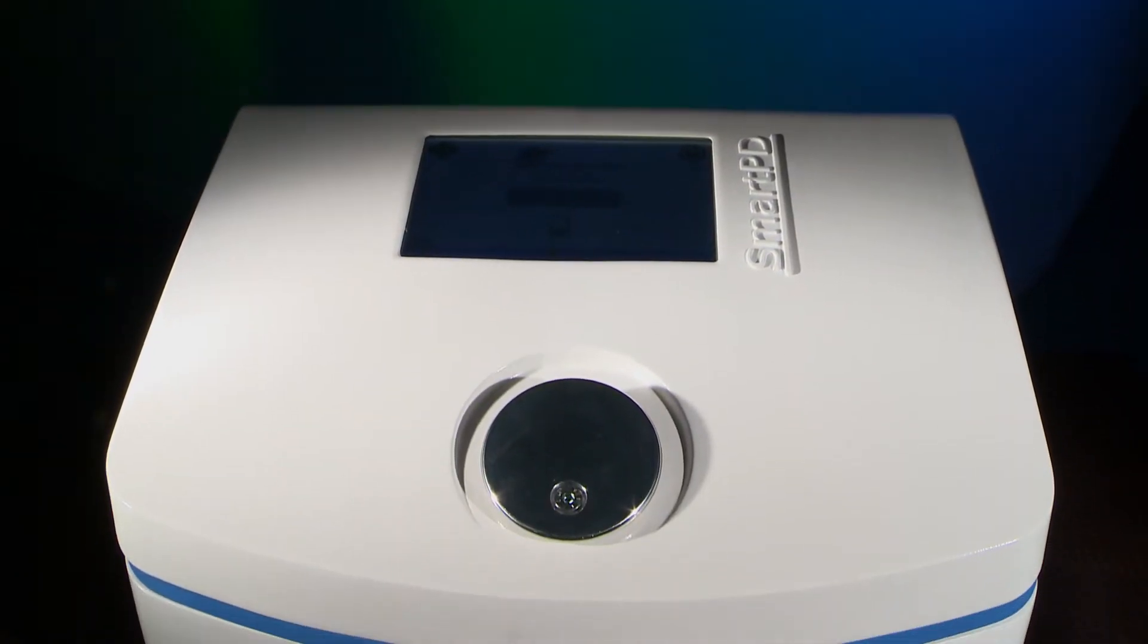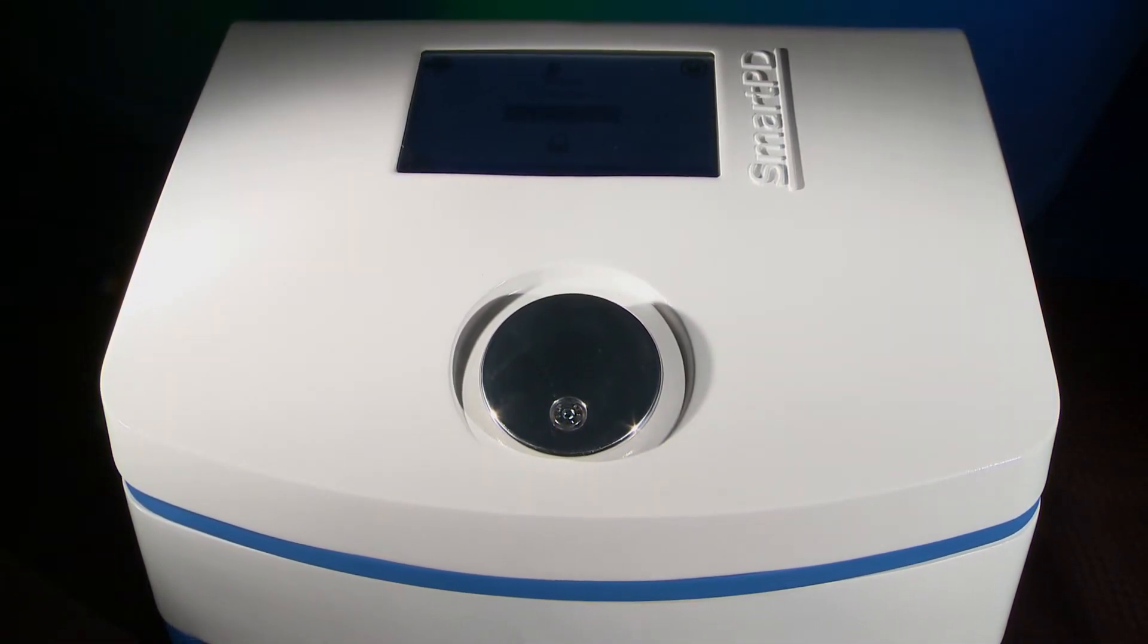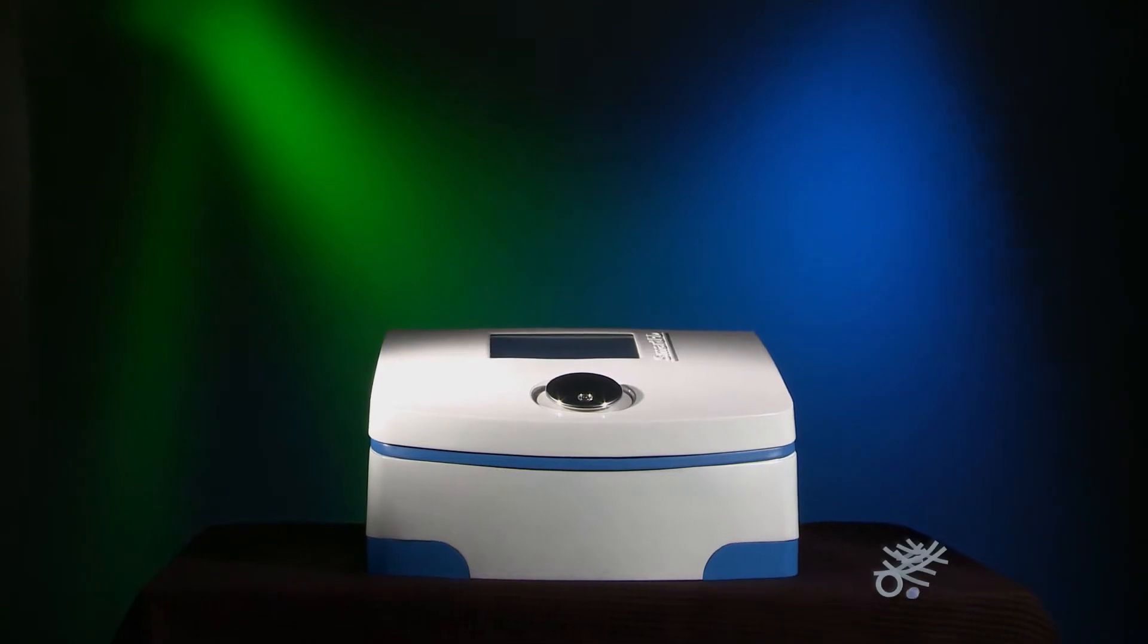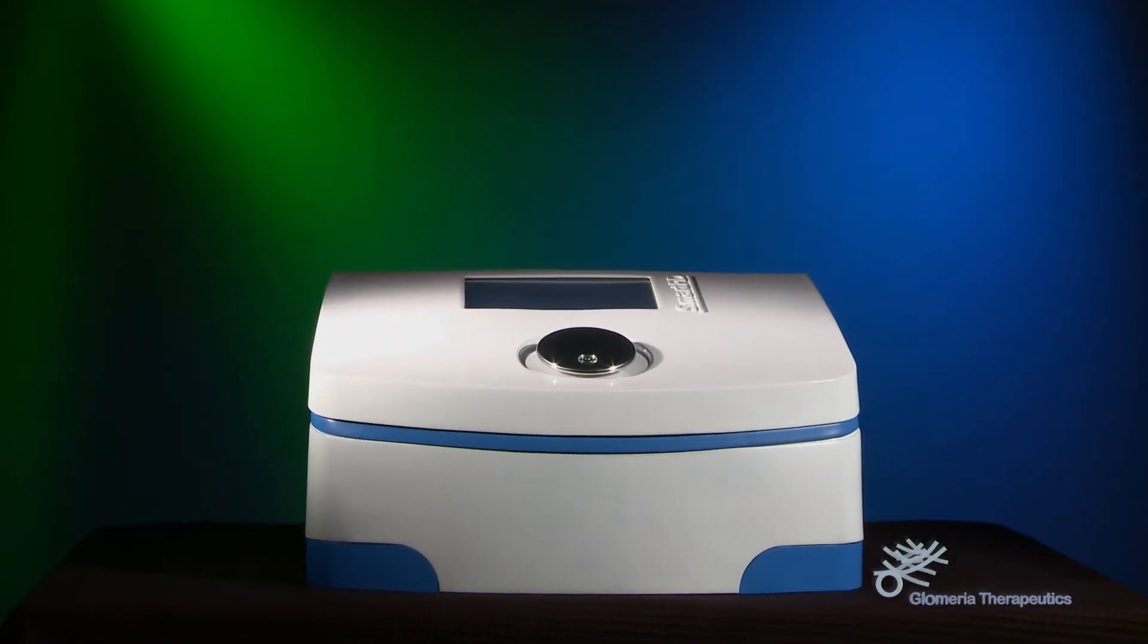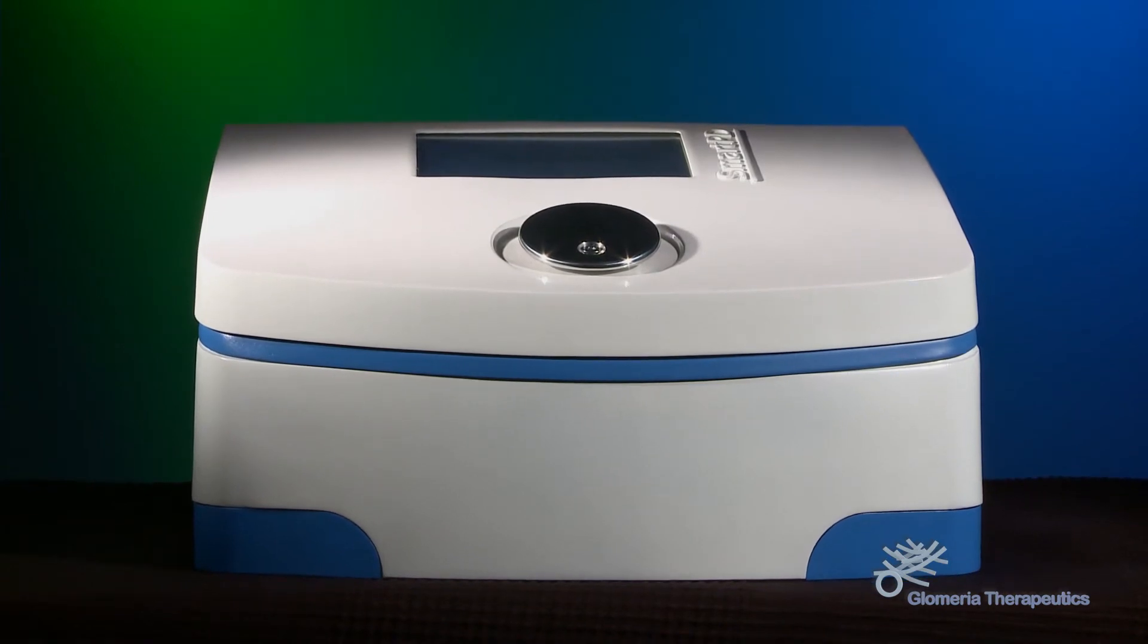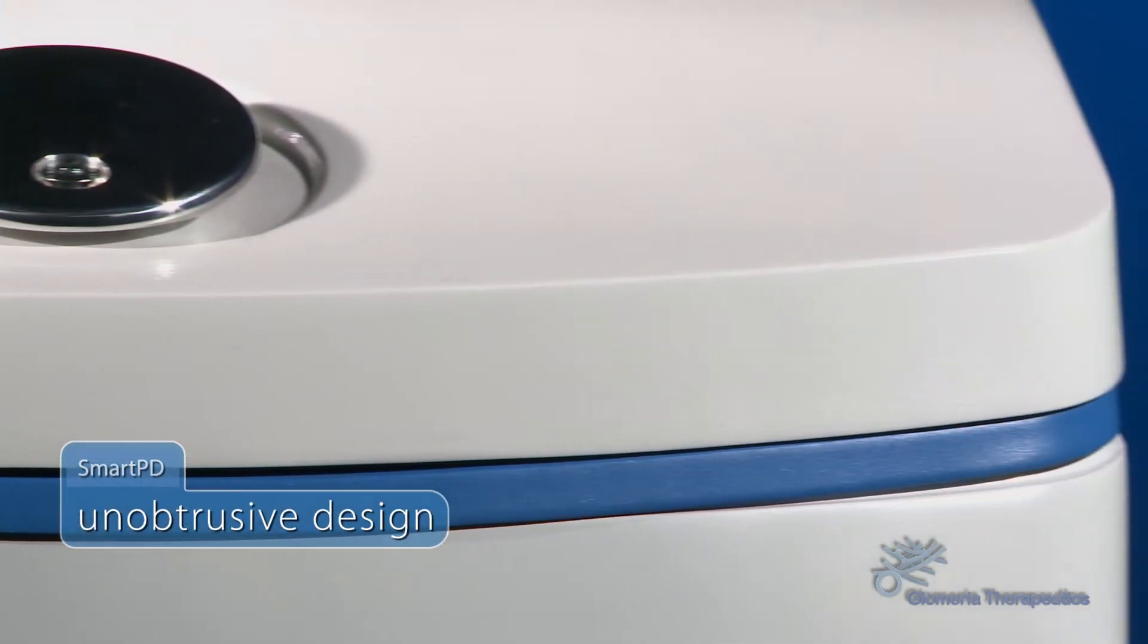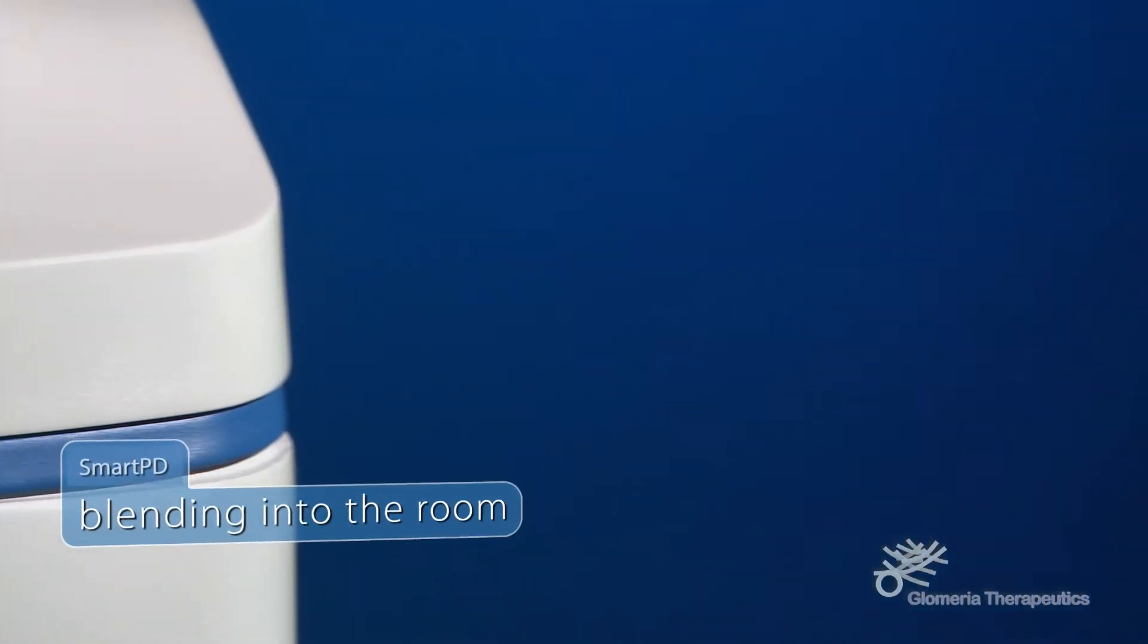Glomeria Therapeutics did not just want to create the most advanced cycler for peritoneal dialysis on the market. SmartPD is a device that enters a patient home on tiptoe, with a stylish unobtrusive design calming the patient while blending into the room of its user.